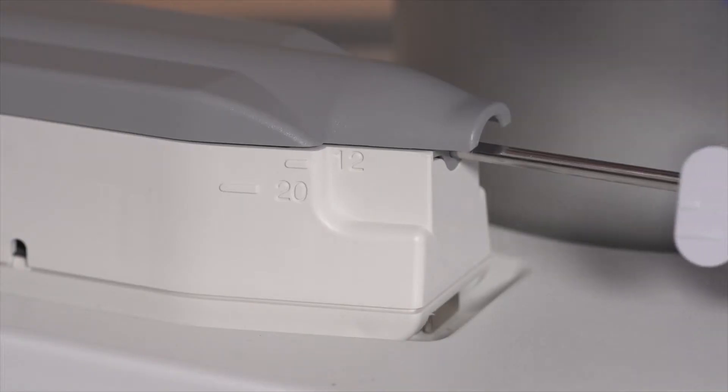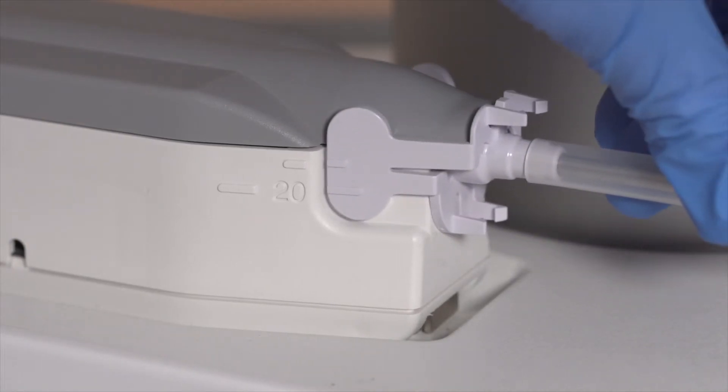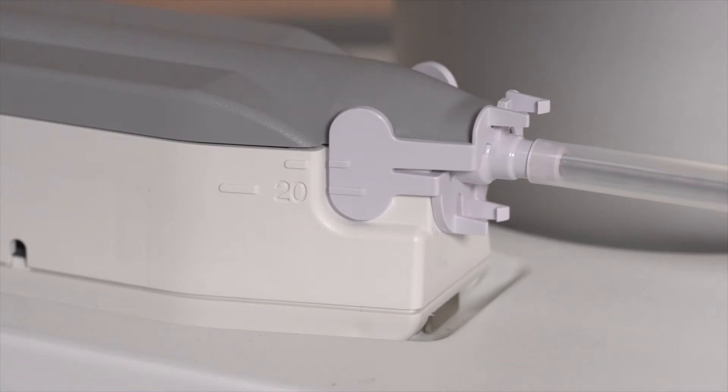For an aperture of 20mm, the 20mm mark on the introducer lines up with the long mark on the reusable device driver.